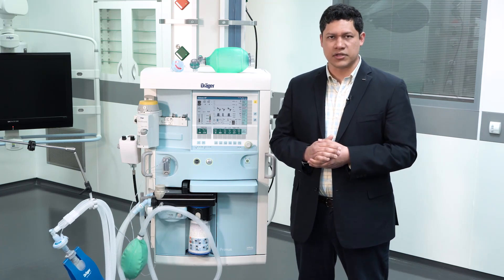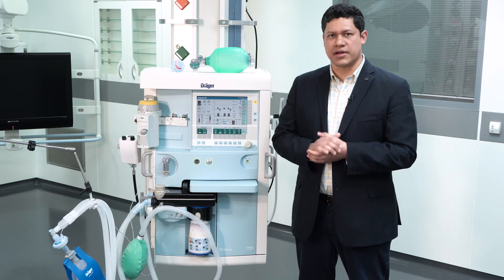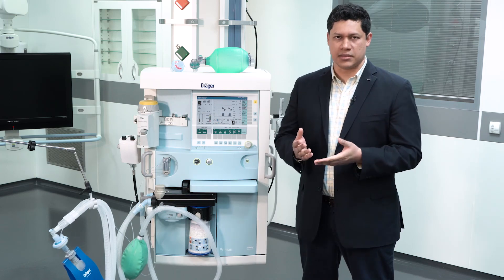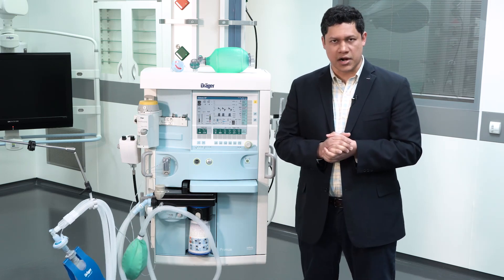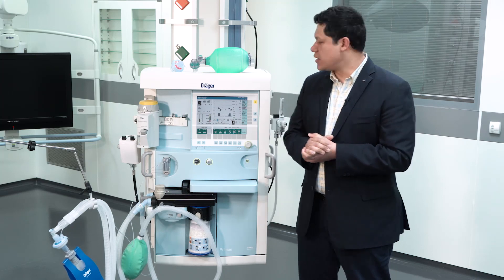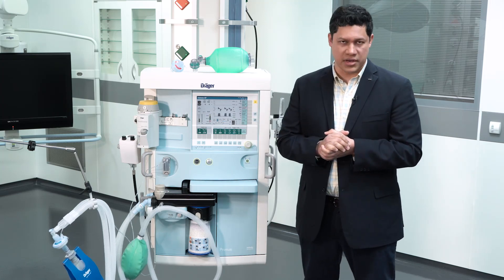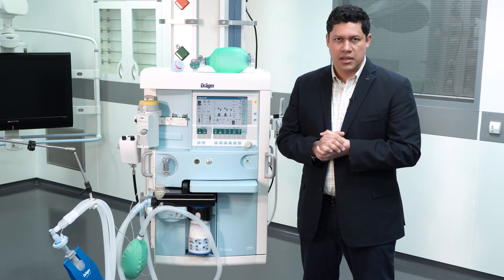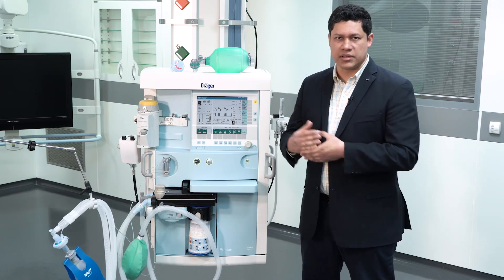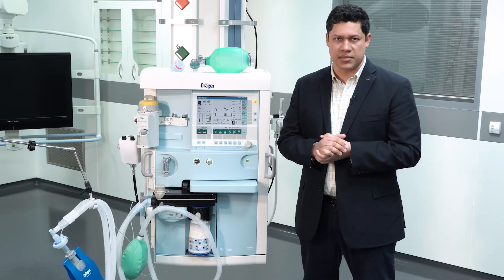Another important difference to highlight is the alarm management in the anesthesia device. Please keep in mind that once the condition triggering the alarm is no longer present, the message in the display will be deleted. Ideally, we have to remember that the user has to be next to or close to the anesthesia device at all times.